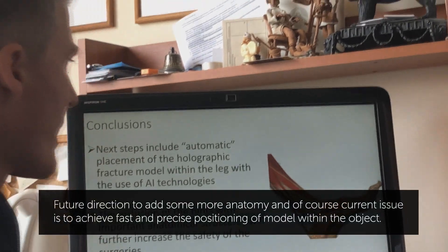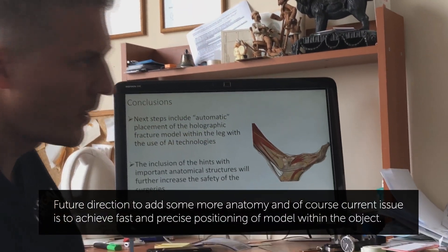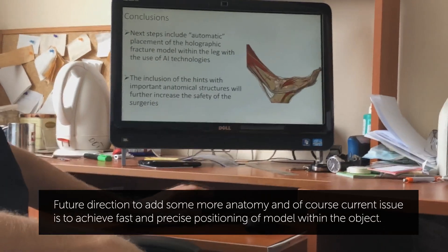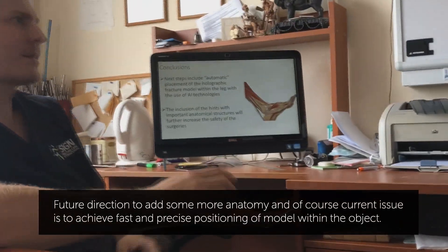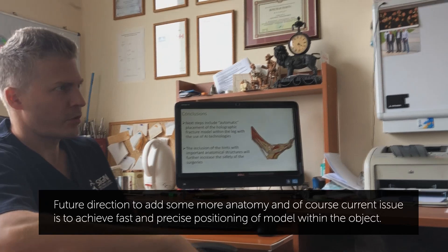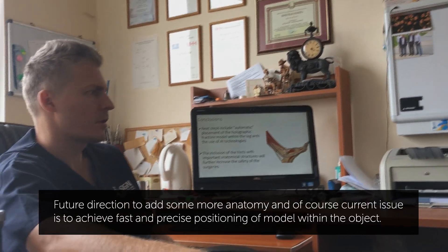Future directions include adding more anatomy. Of course, the current issue is to achieve fast and precise positioning of the model within the object.